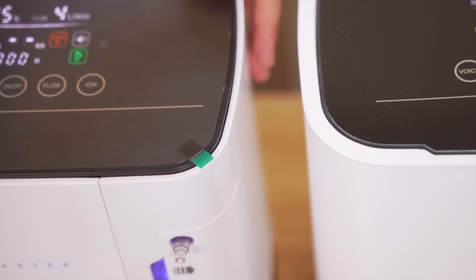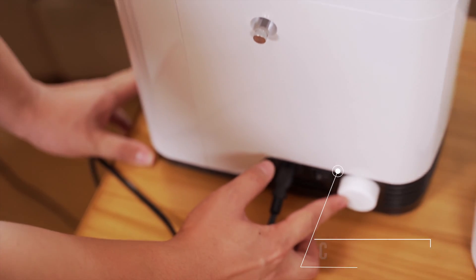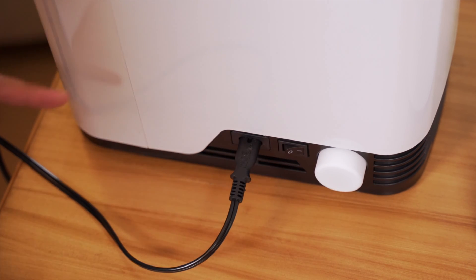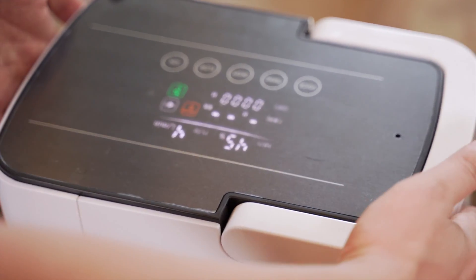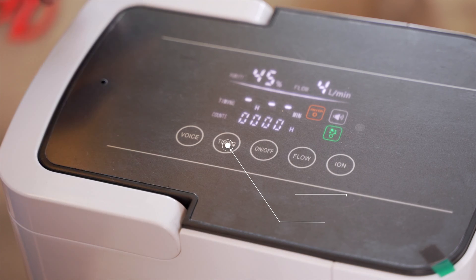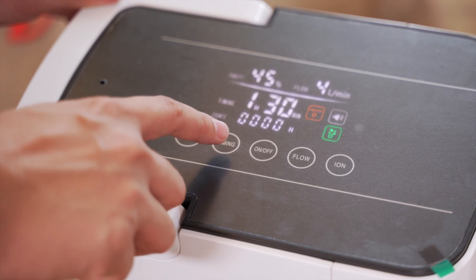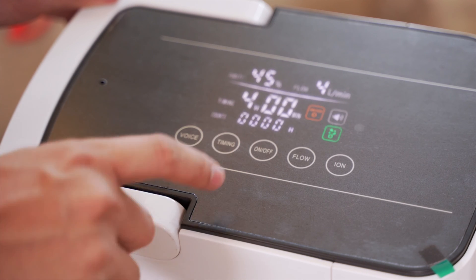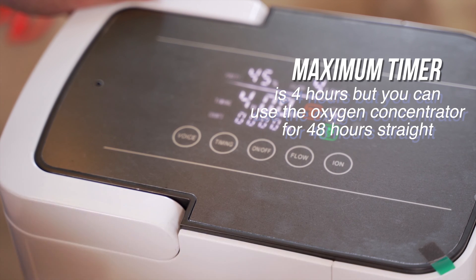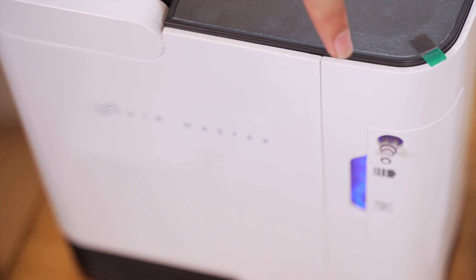For the filter, located at the back, you have to replace it every 300 hours. You can also buy the filter from Air Master. The machine displays a count so you'll know how many hours it has been used. There is also a timer — you can set it to 30 minutes, 1 hour, up to a maximum of 4 hours. However, this machine can actually be used for 48 hours straight, after which the water will evaporate and you'll need to replace it with distilled water.